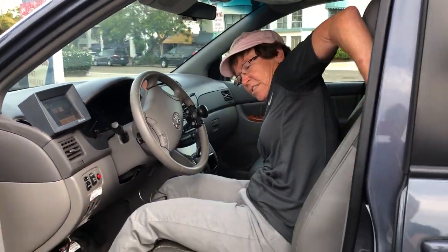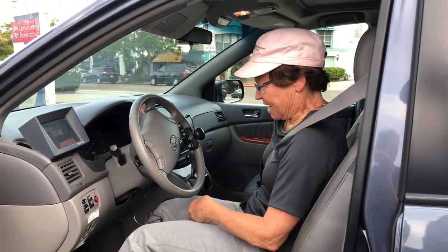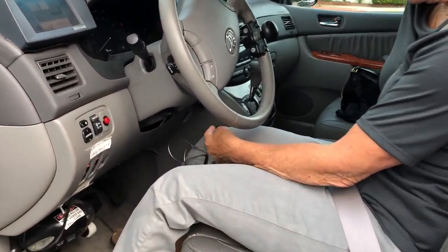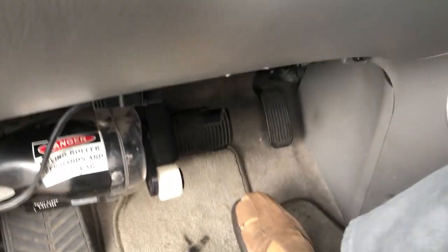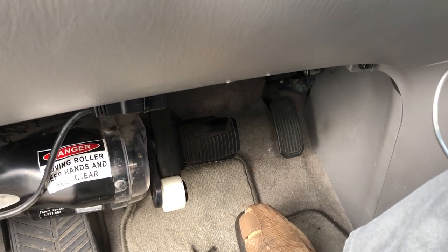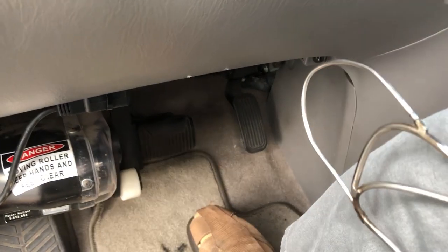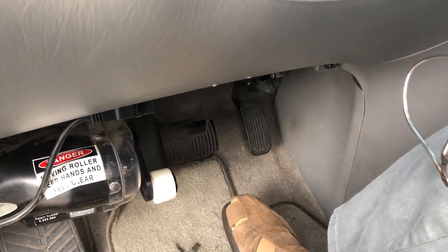So to drive — to get gas I push out, and you can look down almost and you can see the gas pedal depress. Pushing out with my knee maybe two inches. And pulling my knee in and the brake depresses. So I drive right there.